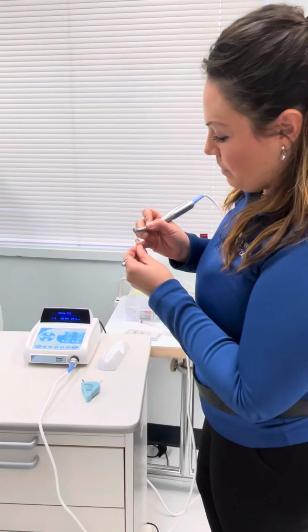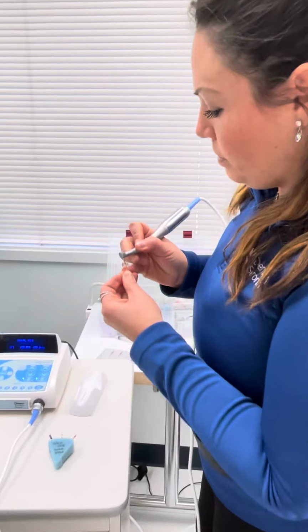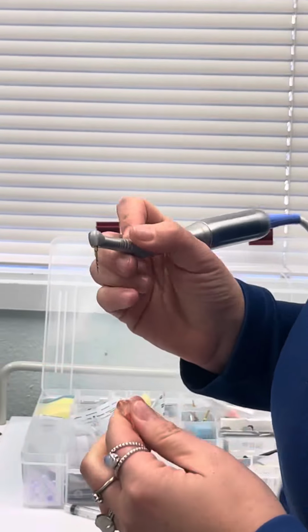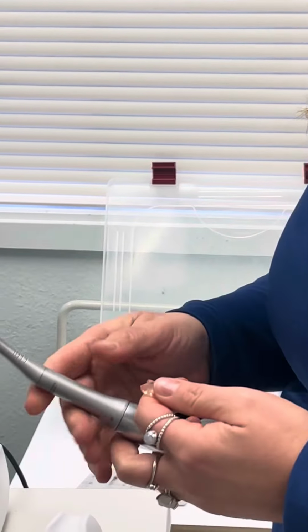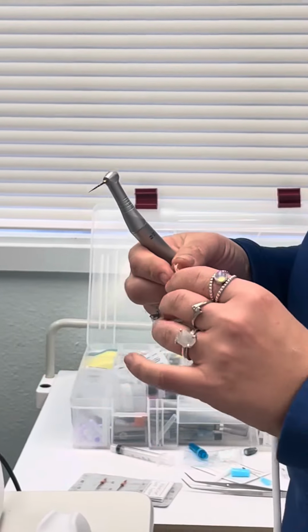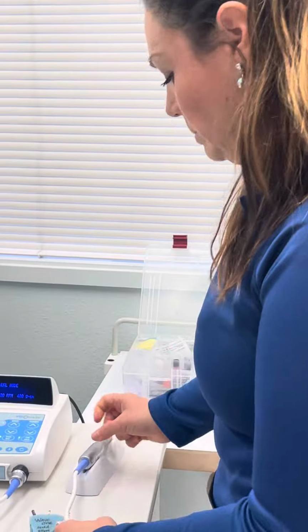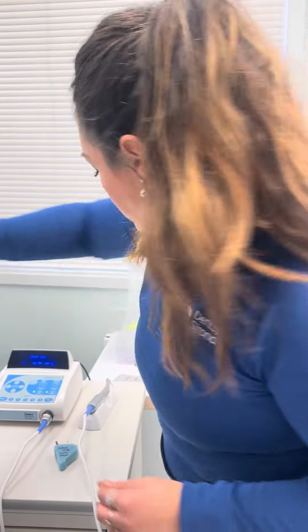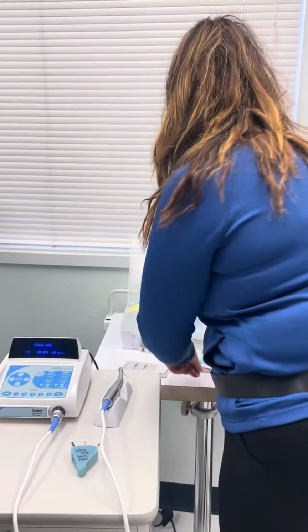So essentially, they're going to go down into the water. I'm going to need the water. It's going to get clogged. So reverse, it's going to take it right out. Forward, it's going to go in, but it's going to get grabby without water. Being plastic, perfect. So I'm going to use this as my fake irrigant.